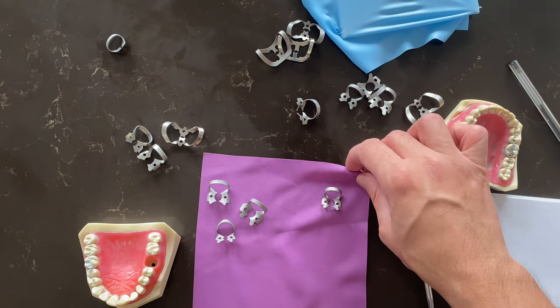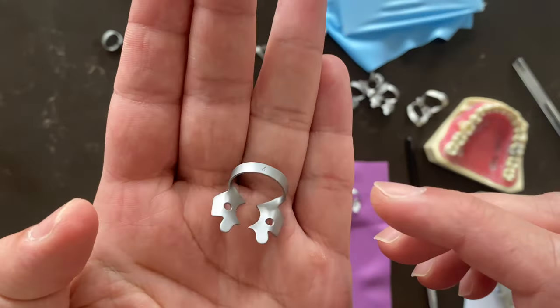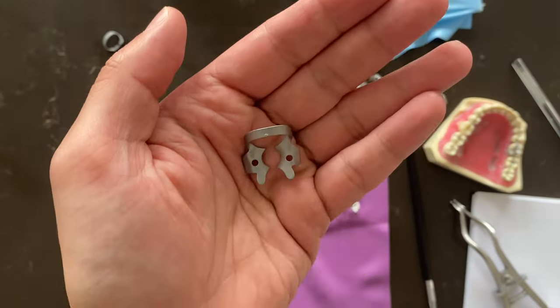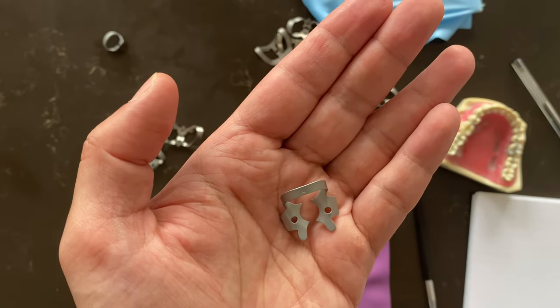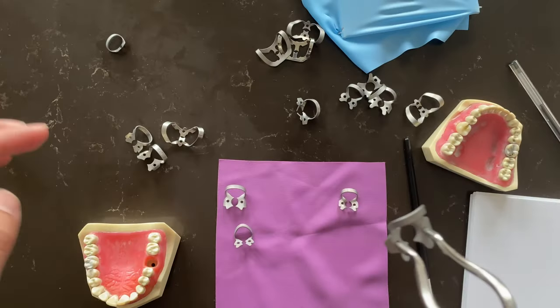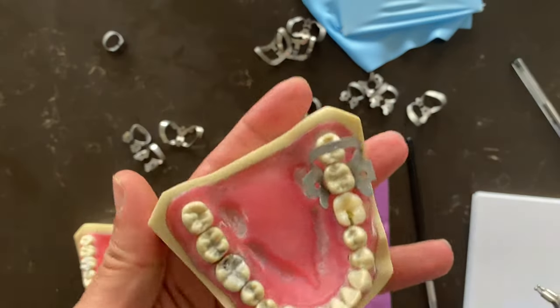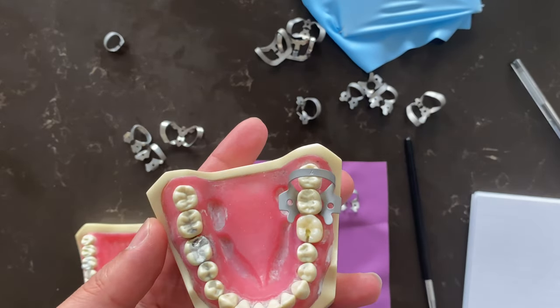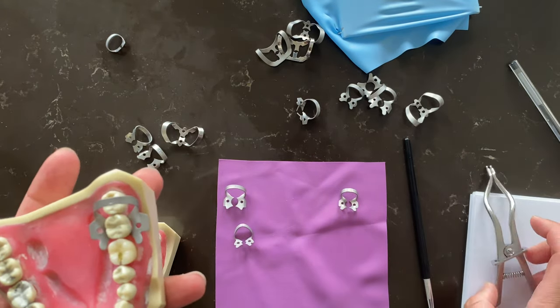Very important — this clamp here, number four. With the lower teeth, you will notice we have mesobuccal, mesolingual, distobuccal, distolingual, one distal. Because of similar roots, we have clamps like these that sink in really nicely — the distal goes here. So if we talk about lower teeth, the number four clamp can go on either molar. We don't need to worry about separate left and right — that's why the upper teeth have 13A and 12A, but for the lower one, number four does the work for you.